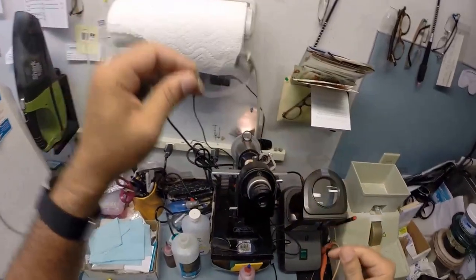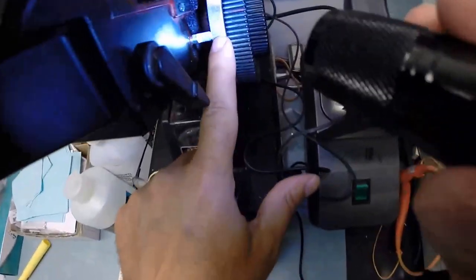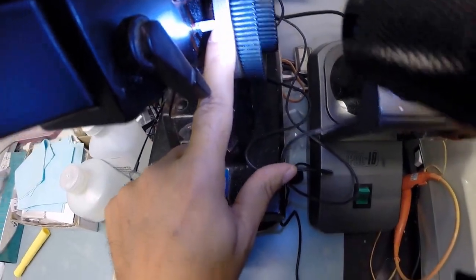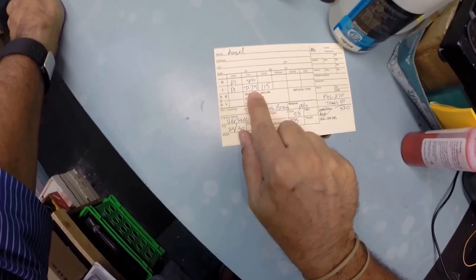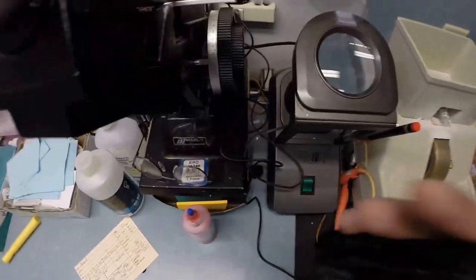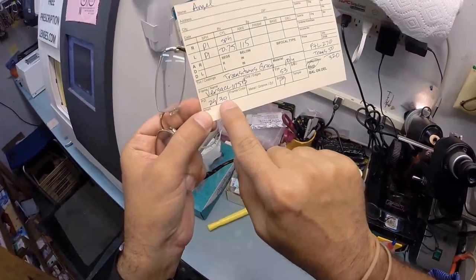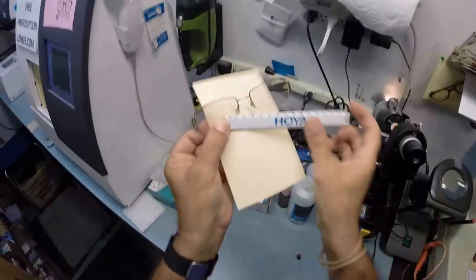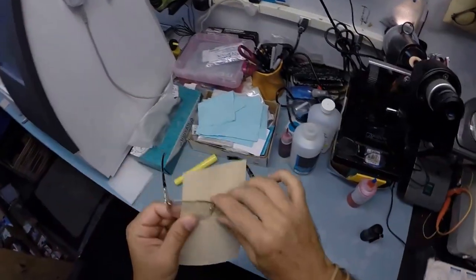Let's come back down here. Where's my flashlight? Yo, man, where's my flashlight? Alright, so let's put it in over that red dot, which is your optical center, your pupillary distance. Check the power and I'm getting zero, no power whatsoever. Let's check your astigmatism correction. And I'm getting minus 75. One tick mark away from one. So if you had no money and someone borrowed 75 cents from you, which would be hard to do with no money, but you would be minus 75 into the red. That's where we're at. Minus 75 into the red. Your pupillary distance for your right eye is 29, 30 for the left, for a total of 59. I'm going to flip that over. I'm going to place the PD stick against my thumb on your right lens. And over on the left lens, we're getting 59 millimeters, one tick mark away from 60. So that is made perfectly.